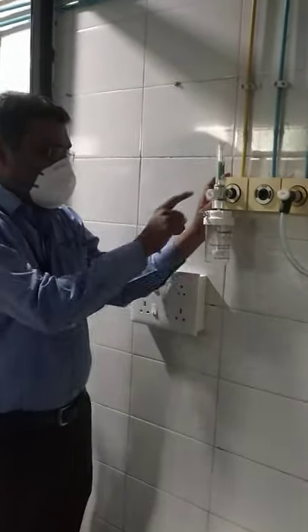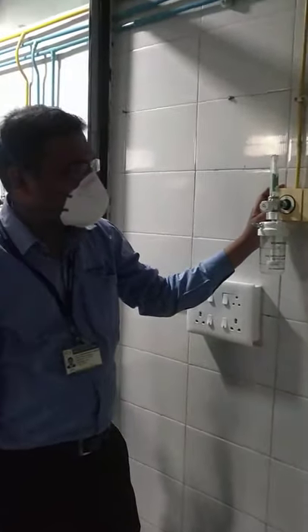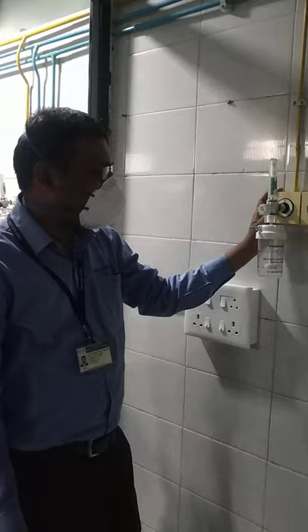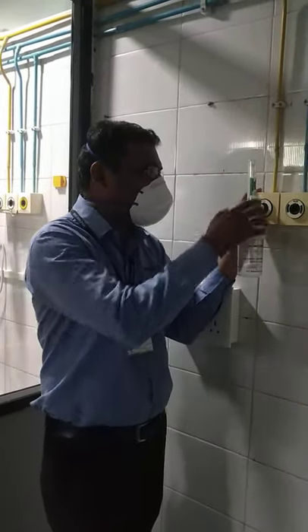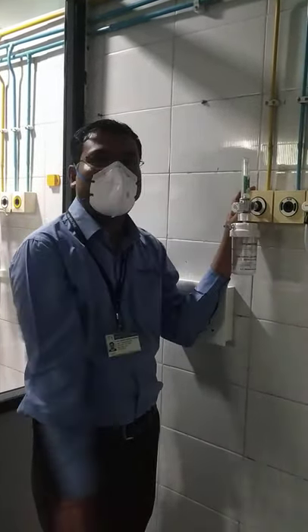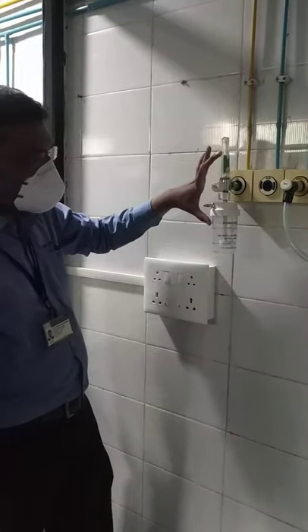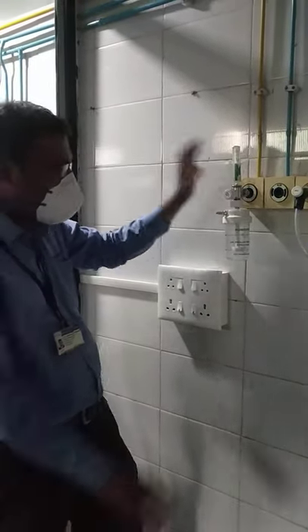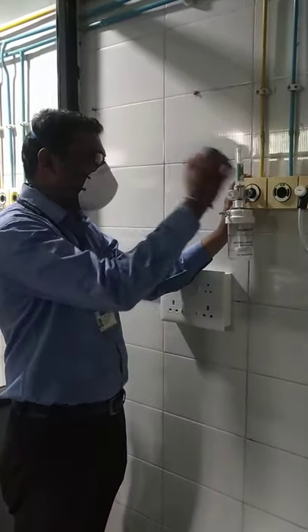Dry oxygen is dangerous to the patient. That's why we give moist oxygen to the patient — that's why we use a humidifier bottle. This is called a humidifier bottle. Now I will show you how to remove and how to fix the humidifier bottle.